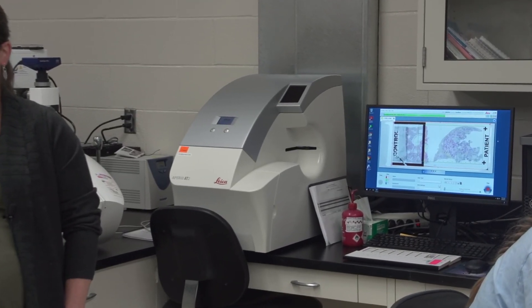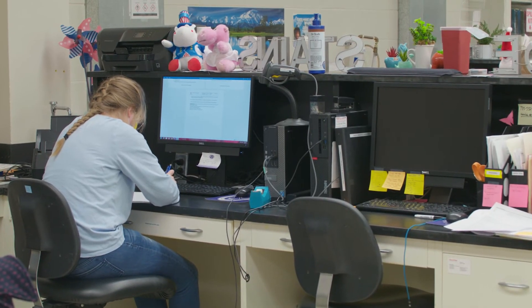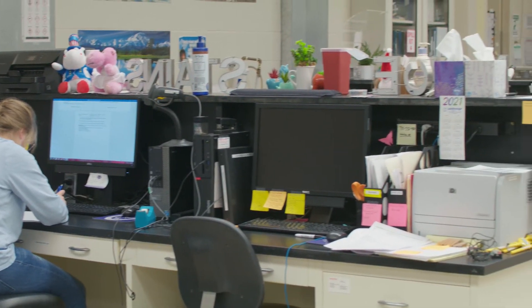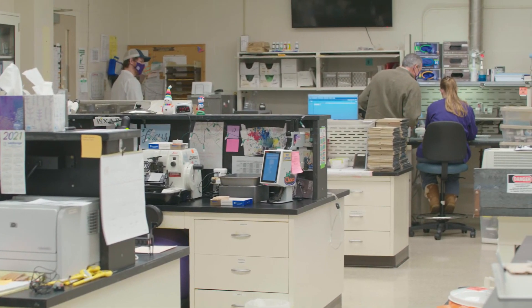We also have a digital pathology section which can scan high magnification and resolution slides for use on our online platform, allowing remote access and diagnosis by pathologists here at KSVDL and outside laboratories, for researchers, and for use in teaching veterinary students within the DVM curriculum here at KSU. We are delighted you took the time to learn about histology and immunohistochemistry and its role in veterinary medical diagnostics, research, and teaching here at KSVDL, and we hope to work with you in the future.